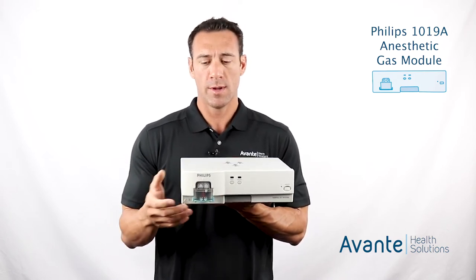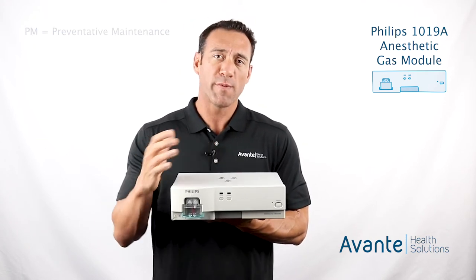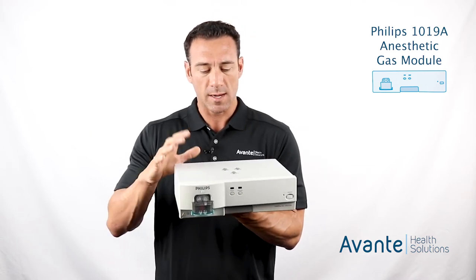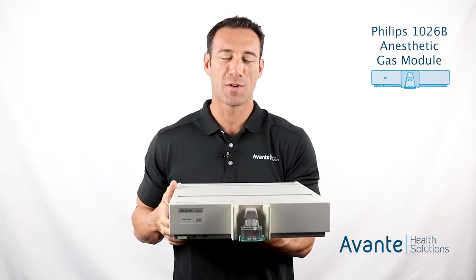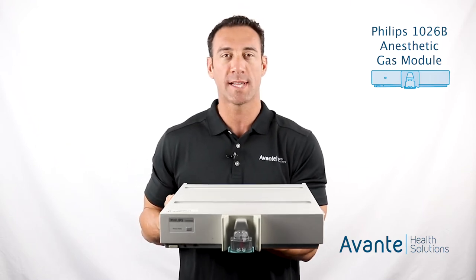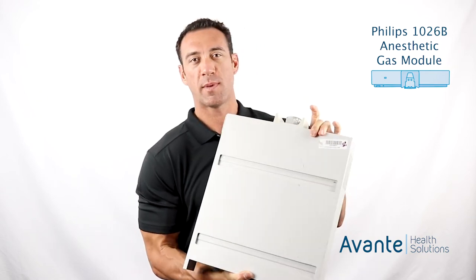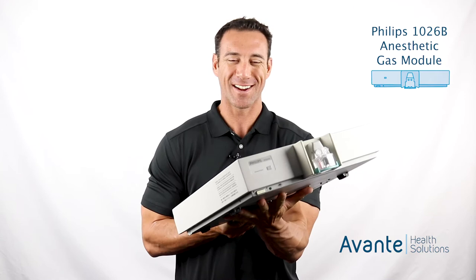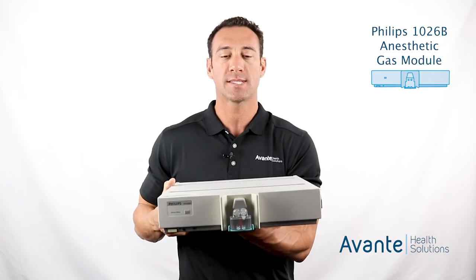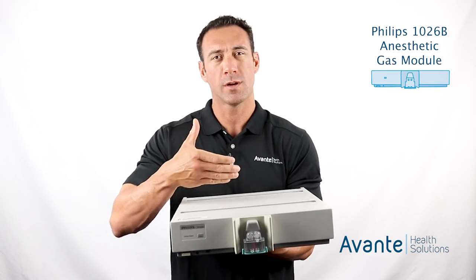The water trap needs to be replaced, cleaned out, or changed very often. These units also need to be PM'd, and different manufacturers call for different types of PMs — something the biomed technicians will be looking at. Here we're looking at the Philips M1026B AGM, one of their older style units. It's quite massive and they called these — and still do — "pizza boxes" because of the way they look. As with the G5, you have the water trap up front to catch any humidity or liquid respired from the patient.